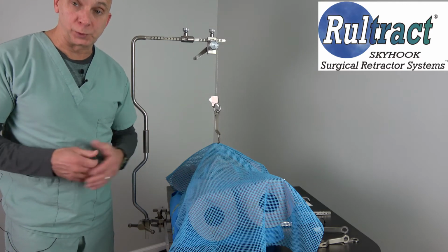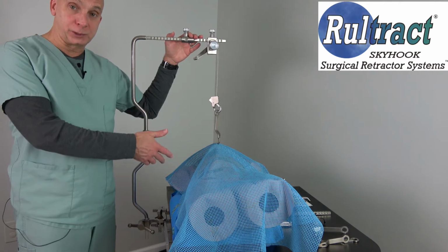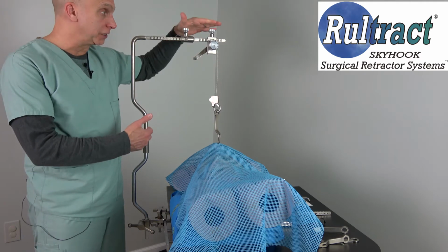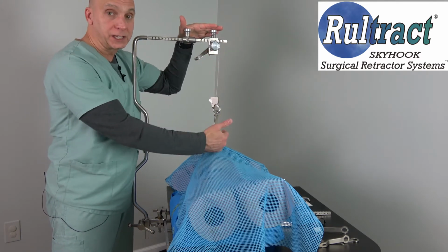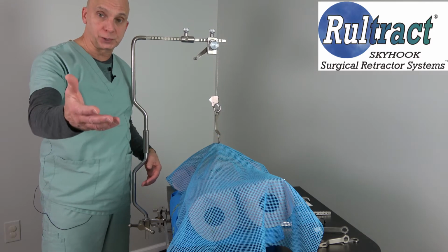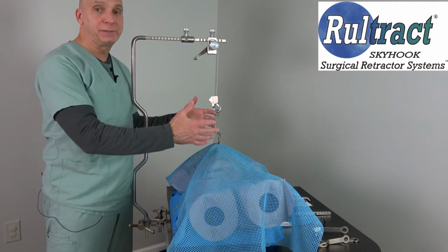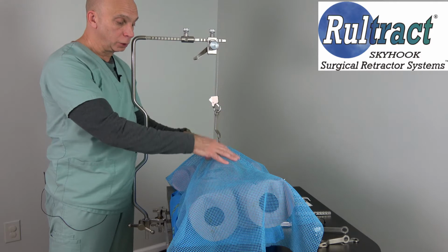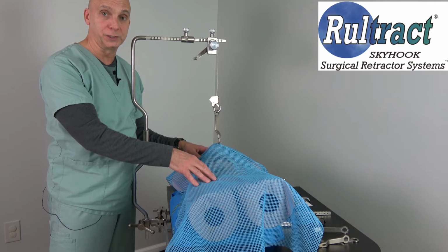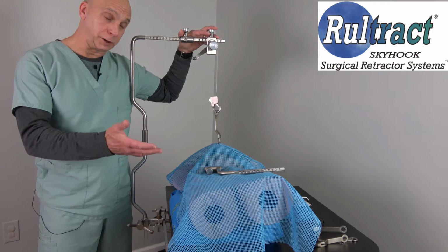My name is Philip Rulo with Rultract, and you had both inquired recently about the use of the Rultract and some attachments for pericardial windows. What I want to do is go over the importance of the extender bar, which is necessary for the midline incision, as well as quickly show you a couple of the attachments, which I will also include in the email, and the importance of having additional height over the OR table in the event that you have an obese patient for pericardial windows. Now, Terry, you had just asked for a quote on an extender bar for pericardial windows.